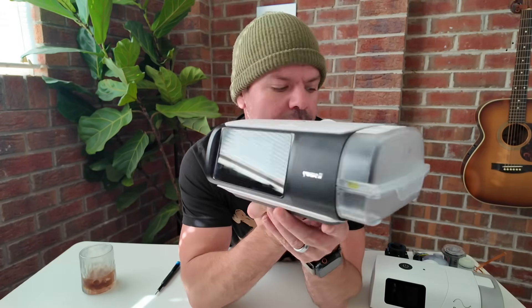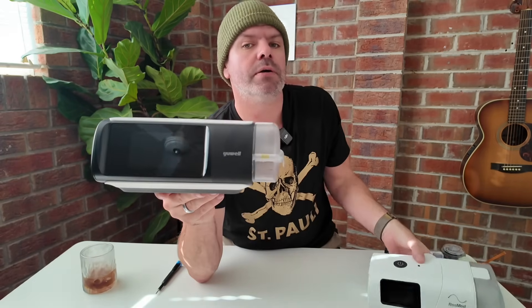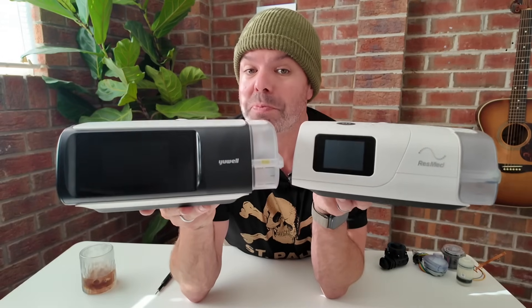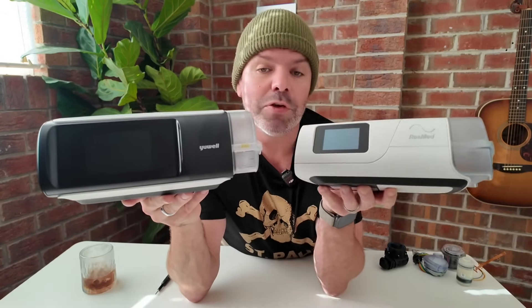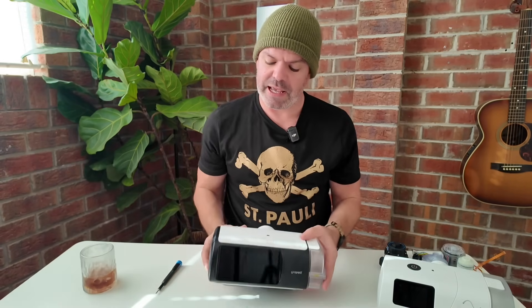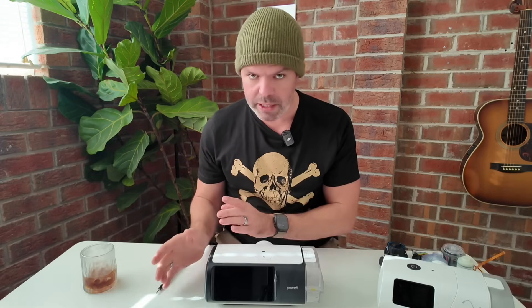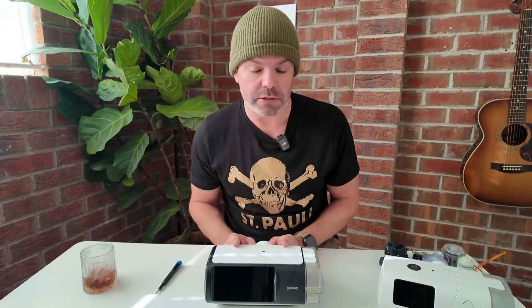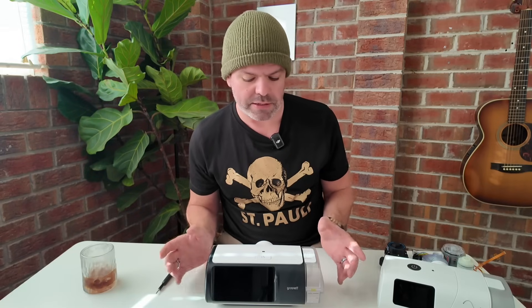She's a good-looking unit, and it looks very, very similar to another good-looking CPAP, the ResMed AirSense 11 series. A few little birdies been whispering in my ear, and they're saying that during ResMed internal meetings, they're talking about this device a lot. They're a little bit worried because it looks just as good, if not better, and it's about half the price.